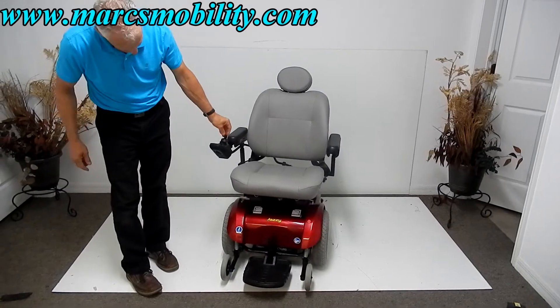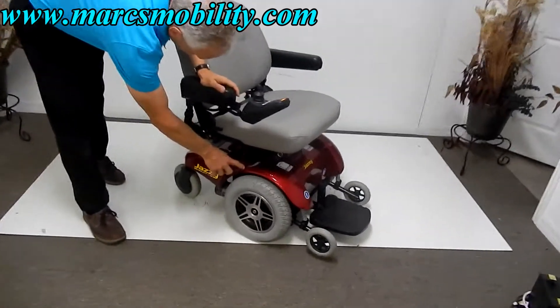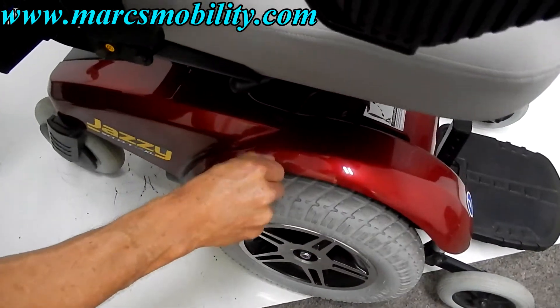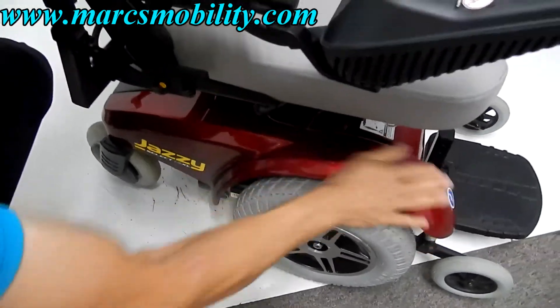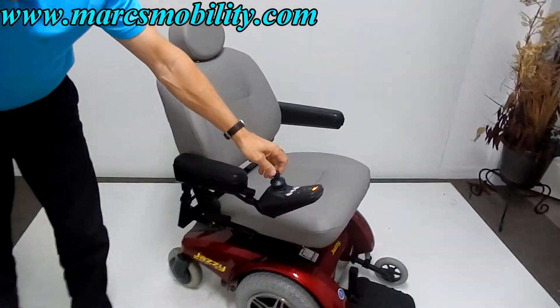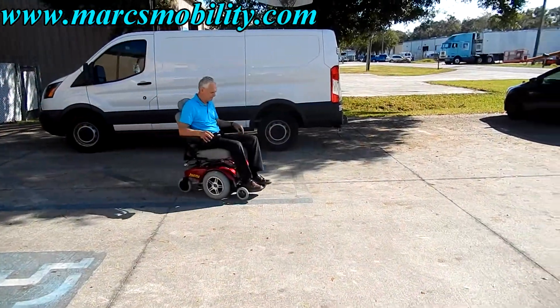This is a very sharp one. I noticed on the side of this chair there's a little mark right here — I'm not even sure if it's a scratch. Actually, it's not even a scratch. So other than that, it's practically new.